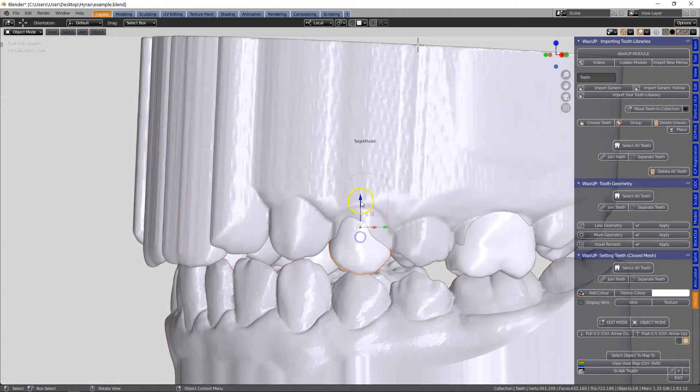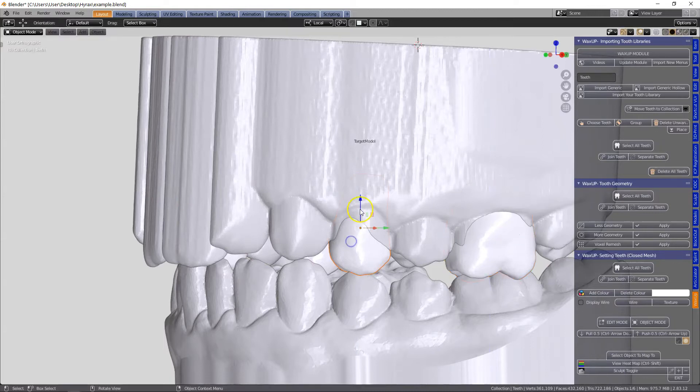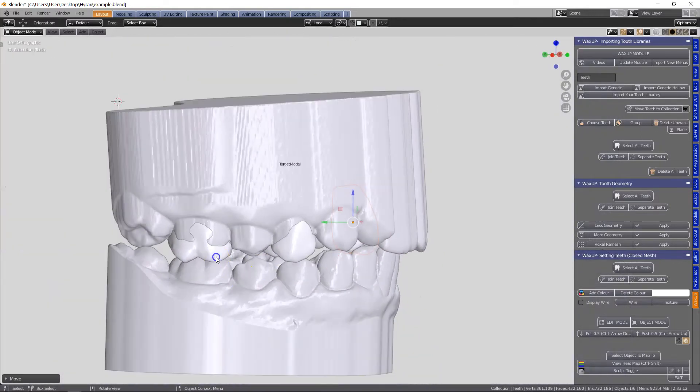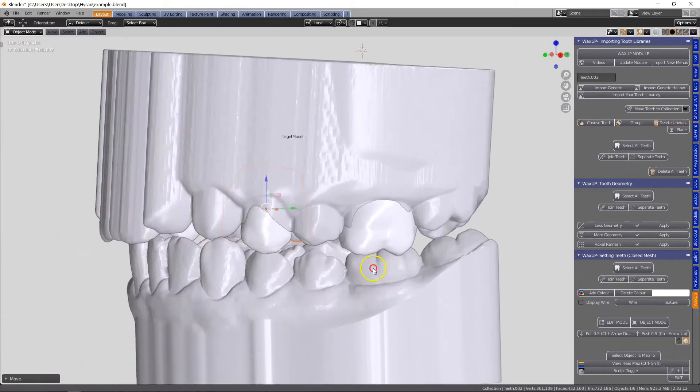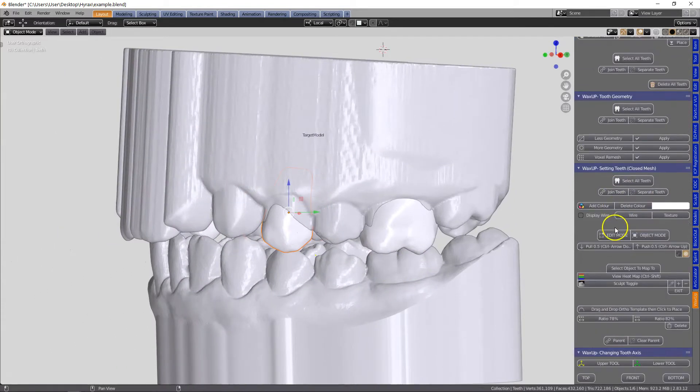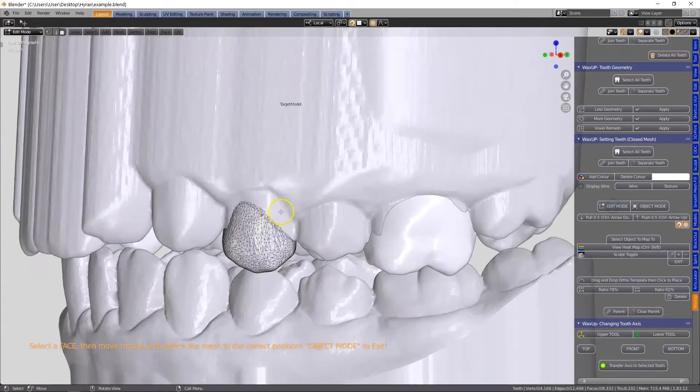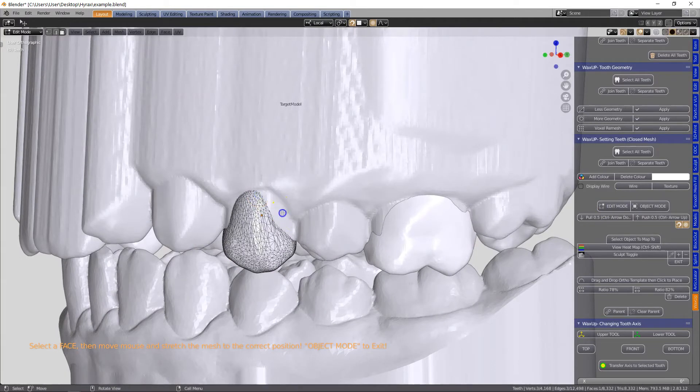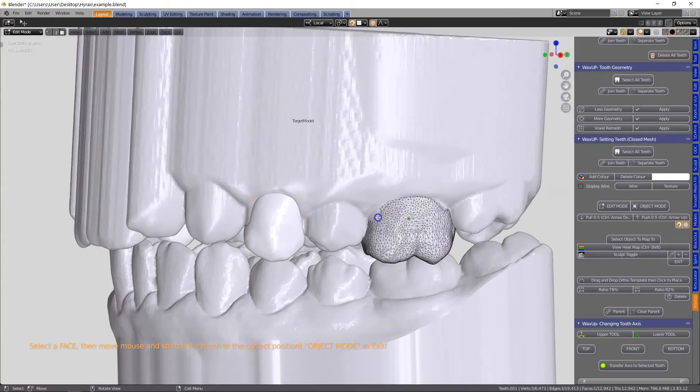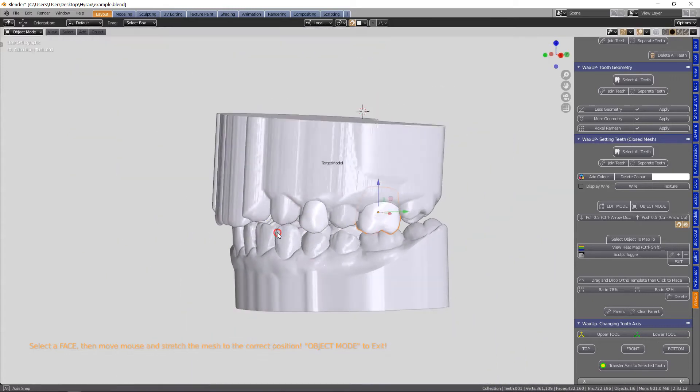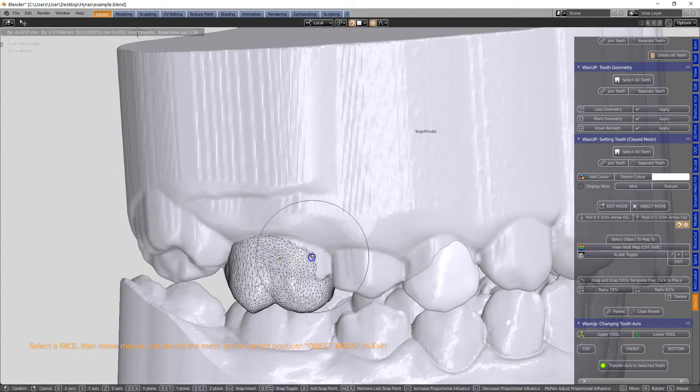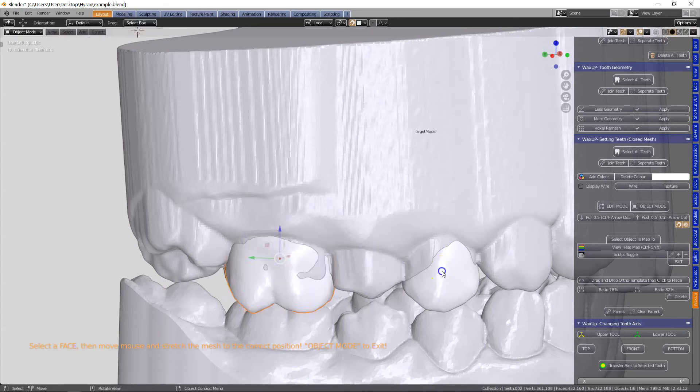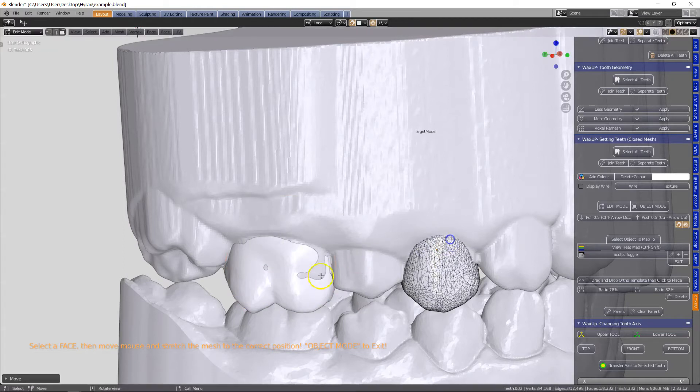Once I've set them, I will check these with my occlusion and then we're going to cut the occlusion as well. But before we do that we're going to wrap these around the actual model. So in the wax up module in edit mode we're going to edit this and it's a bit like pulling a sock over your foot. Click on G to extrude these parts.